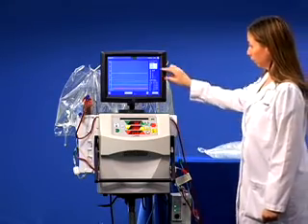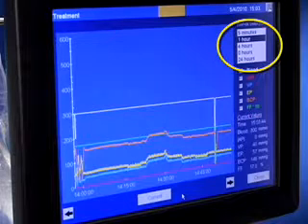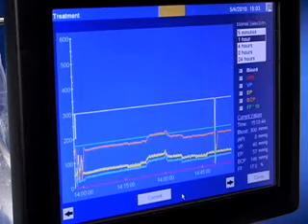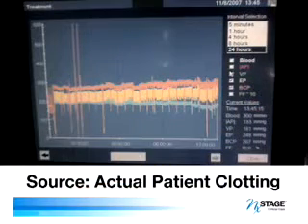Select appropriate interval selection for the length of time the patient has been on therapy. You are looking at the trending of pressures. Any change in pressure trends indicates that clogging or clotting is likely occurring.